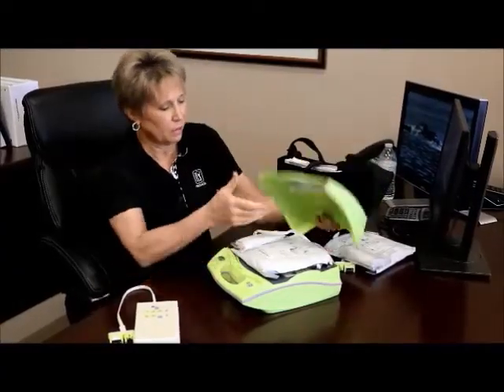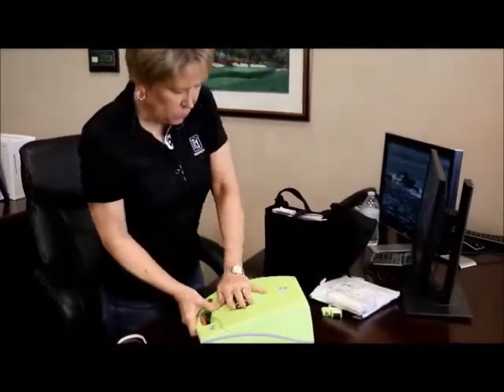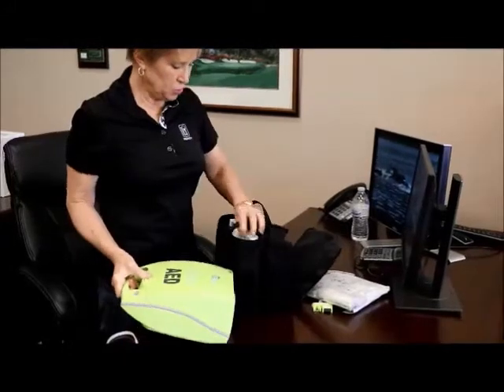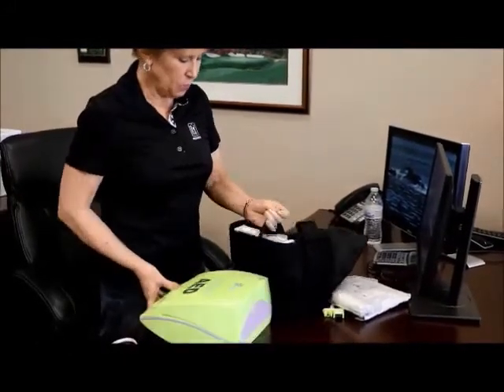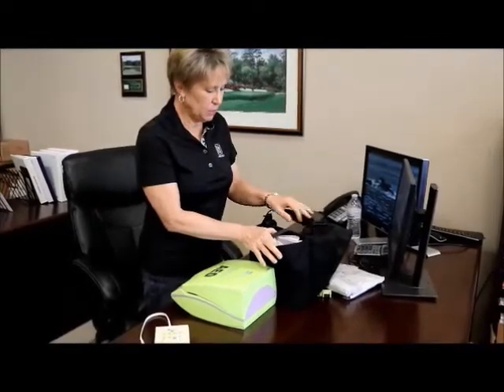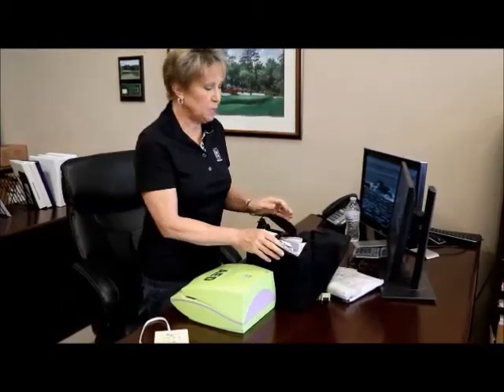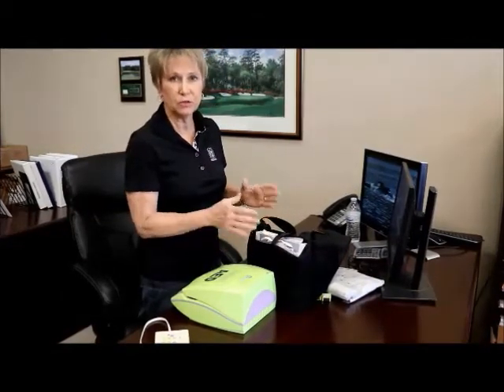One other thing: obviously put the lid back on, pushing down hard. Also check what other accessories are present and note whether it has a carrying case, pediatric pads (which is probably not likely), spare pads, or a fast response kit. If you have any questions when you're there, please feel free to give us a call. I appreciate your time. Thank you.